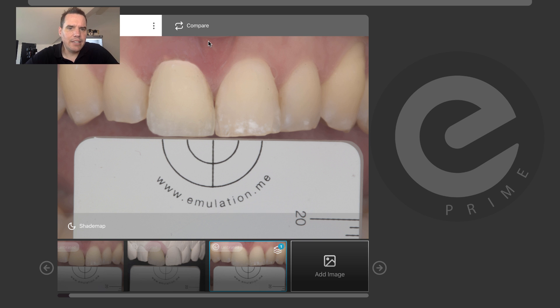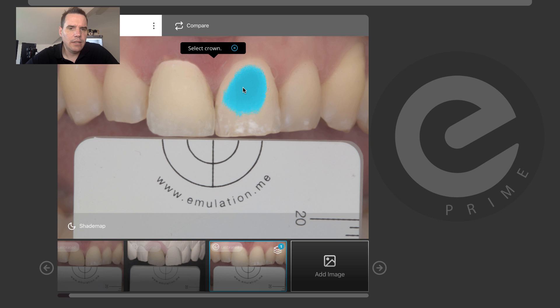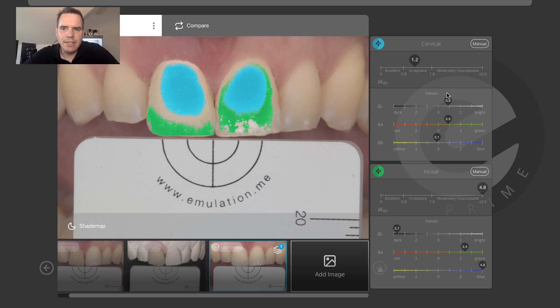Next you want to analyze what the differences are, to get an idea of what you need to change. For that you simply click on compare, click on the tooth first — the one you wanted to copy, tooth 21 — and then click on the crown. This is the color difference. As far as the blue areas are concerned, which is where the dentin color is, this is kind of what you want after the first fire. You want your chroma to be pretty close, but you also still want to have a little bit of excess luminosity because you're likely to lose some of that with the next fire.